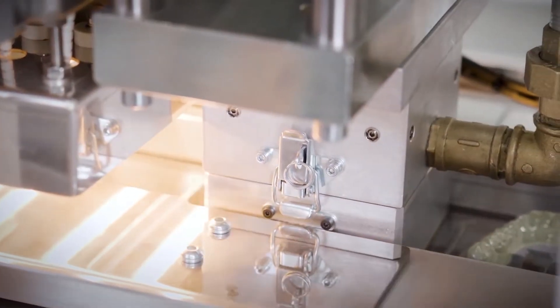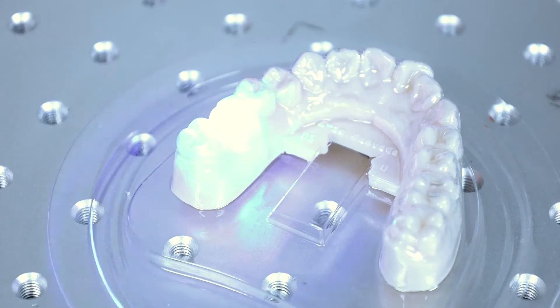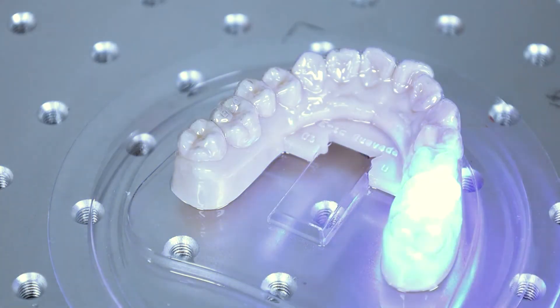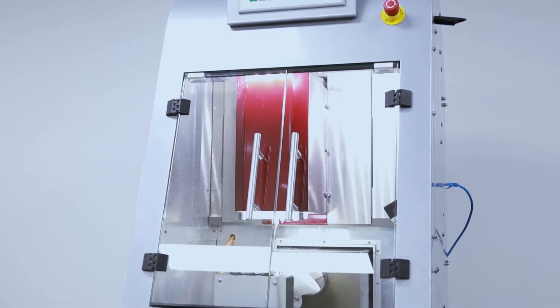The models are pressed with high quality TGA compliant clear material to form the clear aligners. The fabricated clear aligners are then moved to the next station, which utilizes laser technology to imprint the stage and arch identifiers.